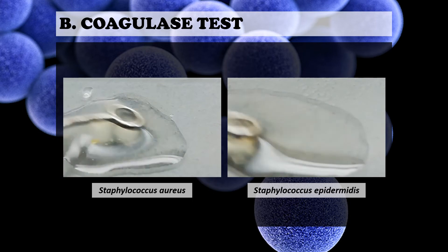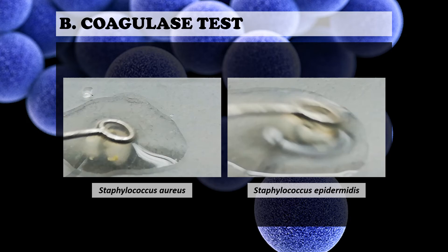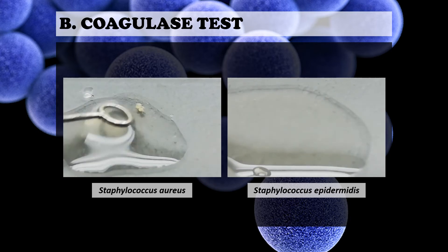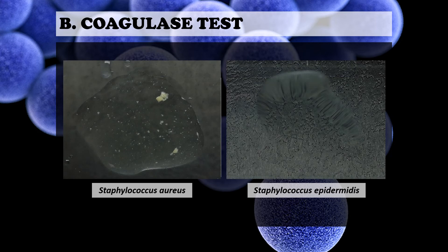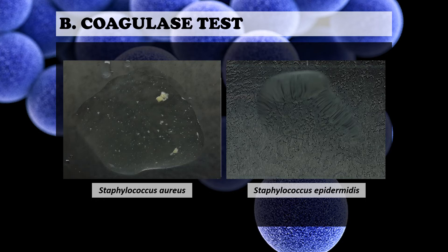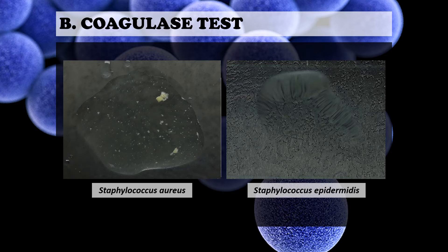Another method for the coagulase test is the slide coagulase. Slide coagulase is used to detect the presence of cell-bound coagulase, and a positive result is indicated by agglutination. Staphylococcus aureus is slide coagulase positive, while Staphylococcus epidermidis is homogenous, meaning it is coagulase negative. Tube coagulase, by contrast, is used to detect the presence of free coagulase — that is the difference between slide and tube coagulase.